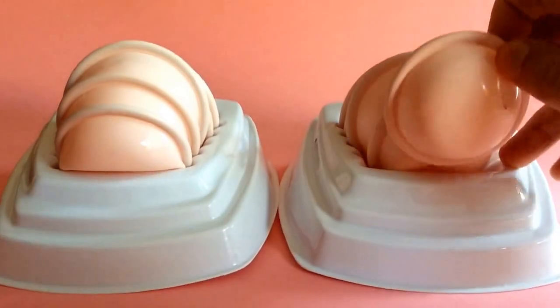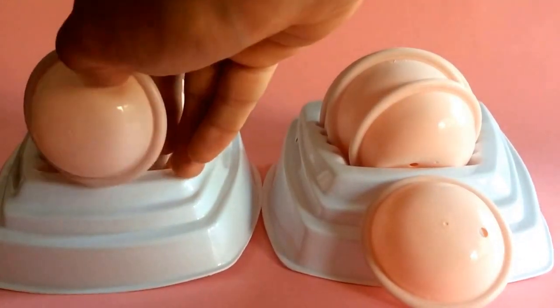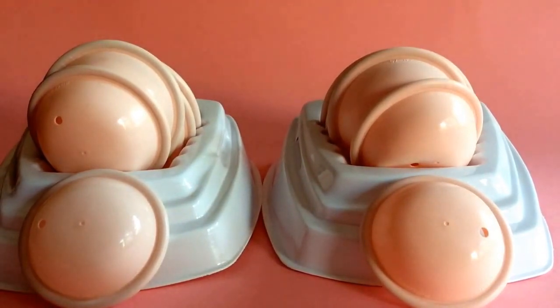With a fitting kit there are holes in them, just to make sure they don't get confused with diaphragms which would be used for contraception with a patient. Basically in a clinic they're going to be used between various patients, autoclaved and sterilized in between of course, but you wouldn't want them getting confused with diaphragms that somebody would take home and use for contraception.